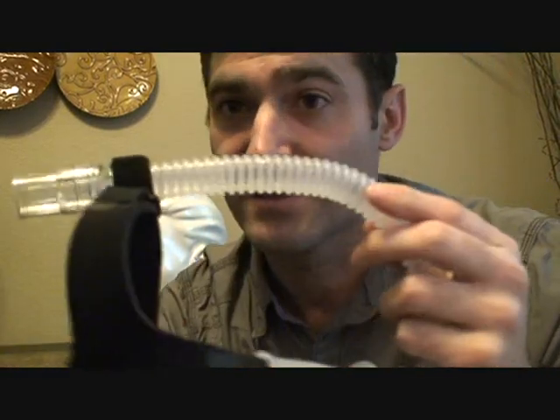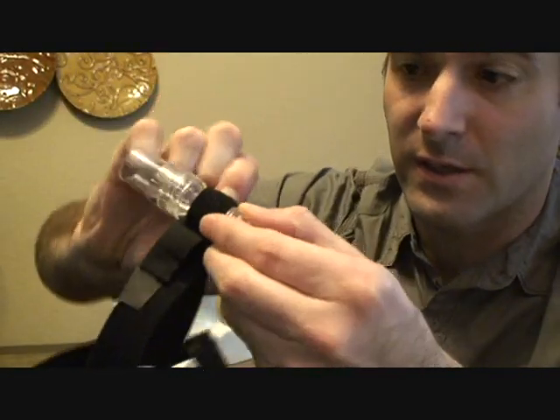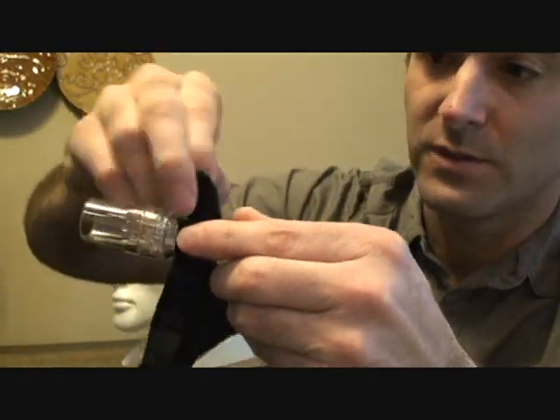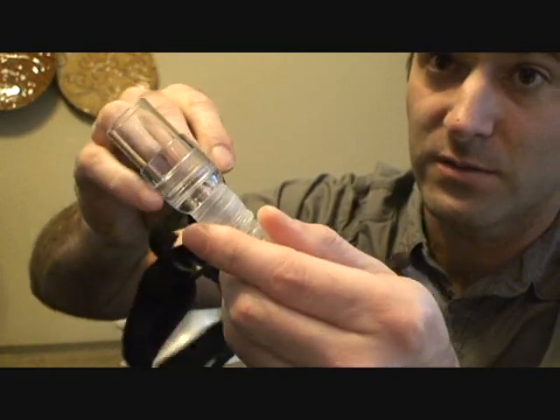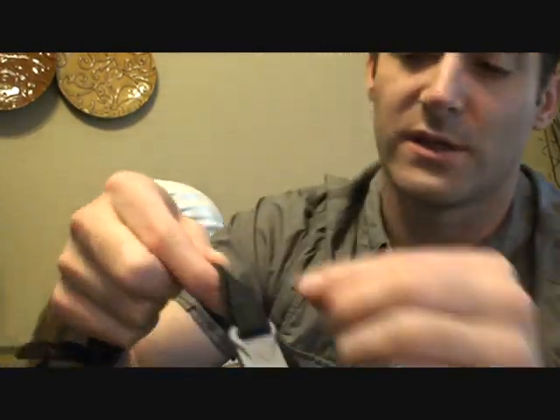This has a tube holder which you don't have to use. If you undo here and undo here, then slide the tube around each other, it comes right out. You can take this off, though it's a pain — I wouldn't recommend it.